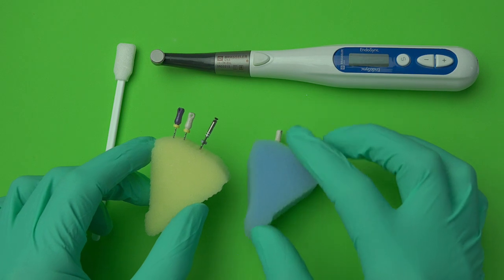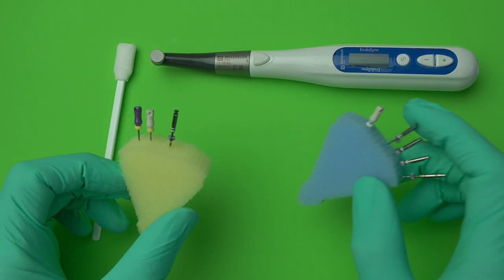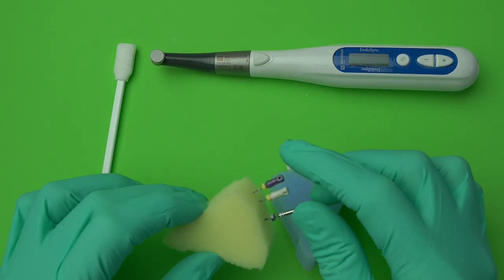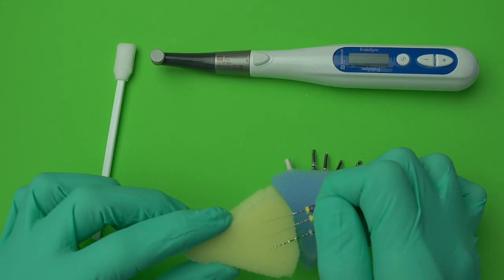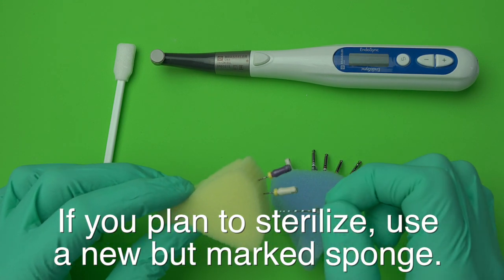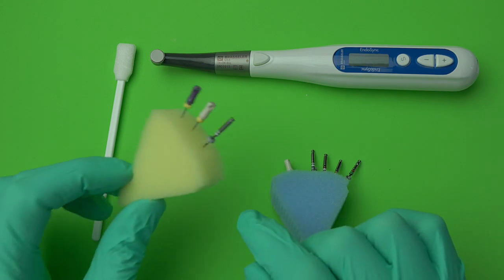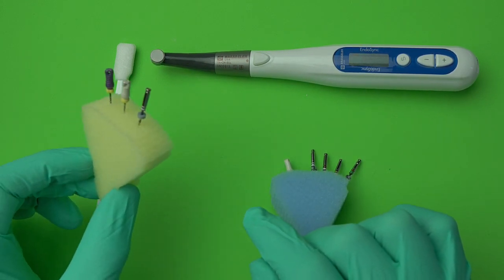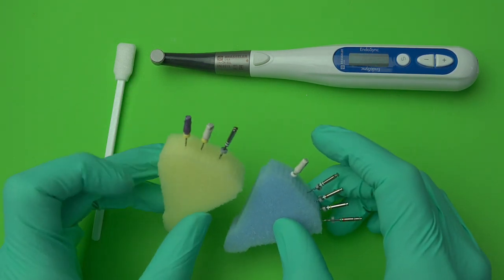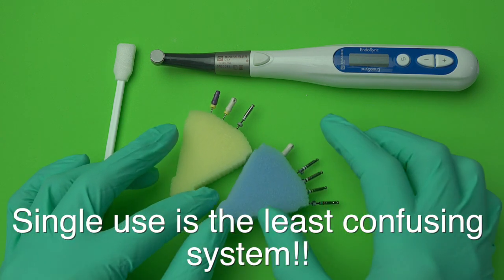We use sponges that are unmarked for new files — in a tough case, just toss it out. For easy cases, the sponge gets marked once, sterilized separately, and put back. If I see a mark on the sponge, I know I can use it one more time only, then throw it out. This helps reduce confusion for the assistants so they don't have to overthink it.